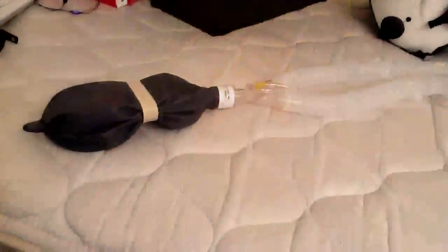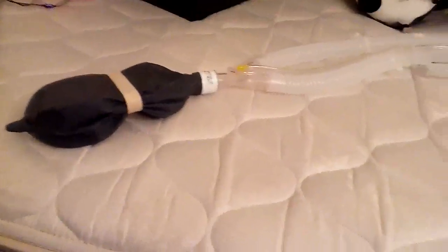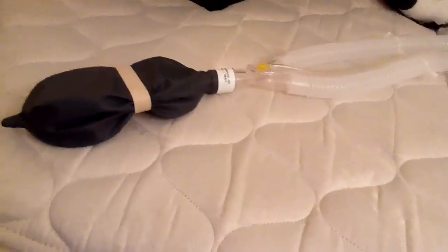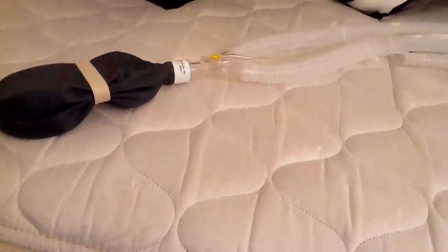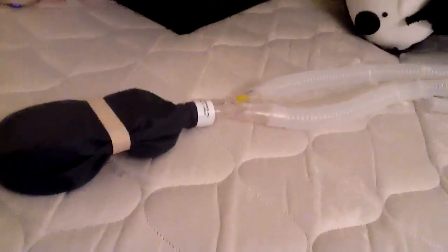So really the focus of these videos is to get people familiarized with the LTV-1200 and how to use some of the basic options. So without further ado, let's go ahead and start by appreciating the external characteristics of the ventilator circuit. This is a circuit specific to the LTV-1200 CareFusion.